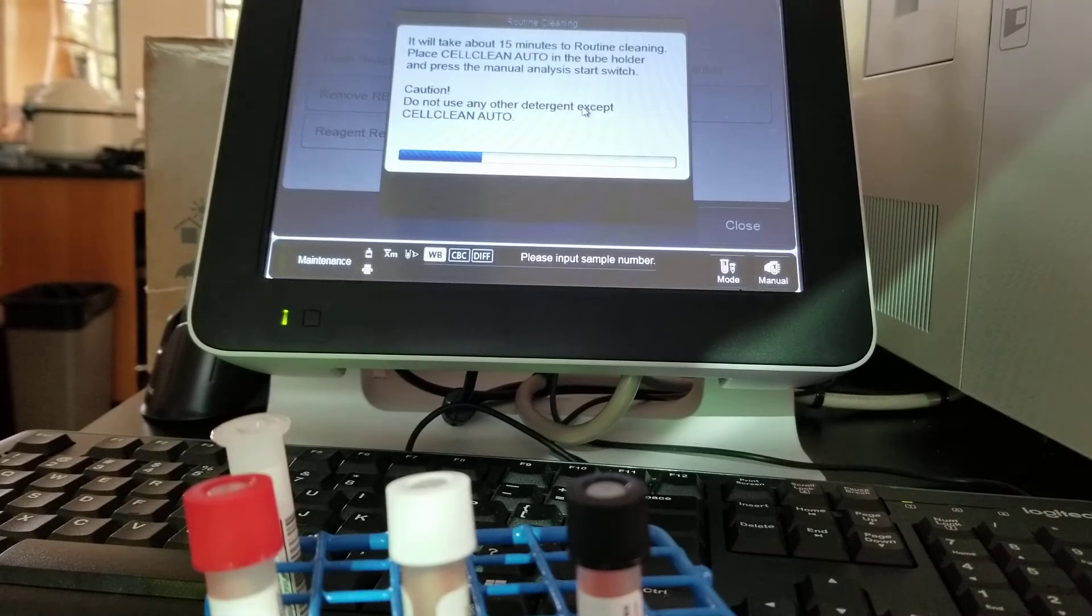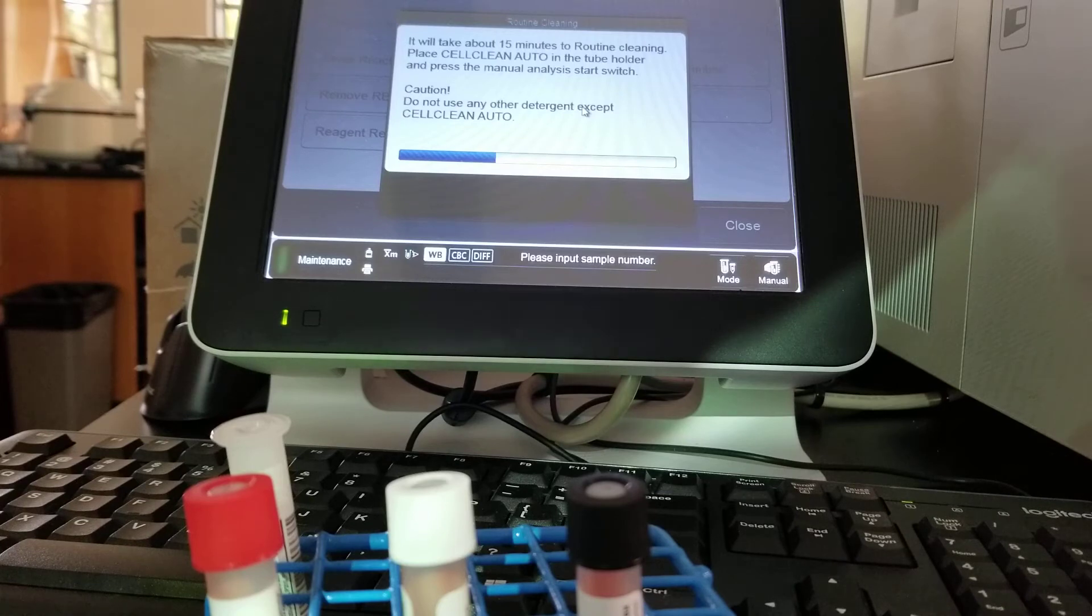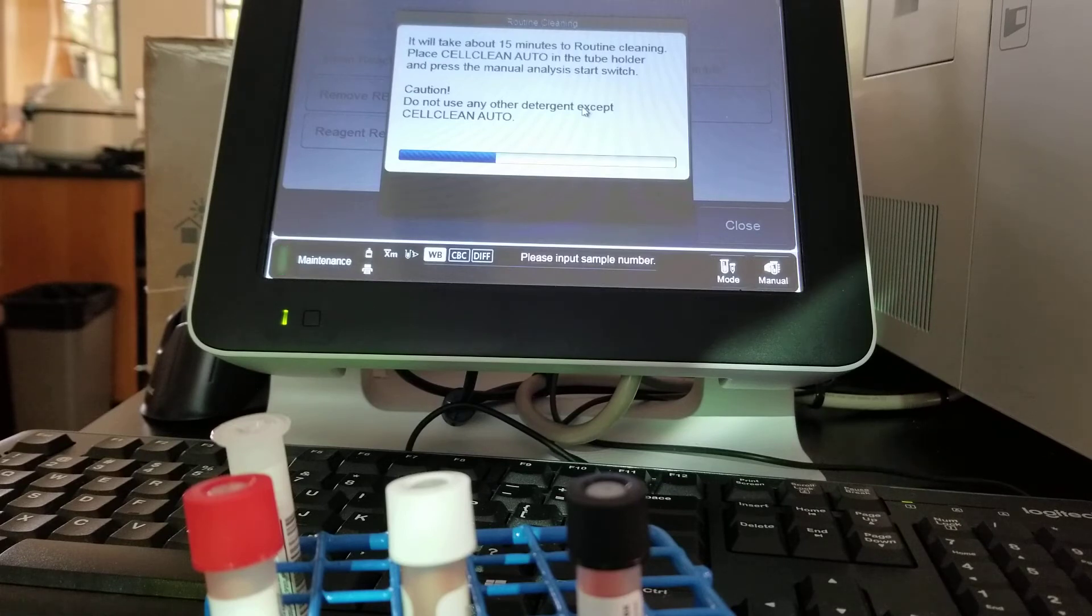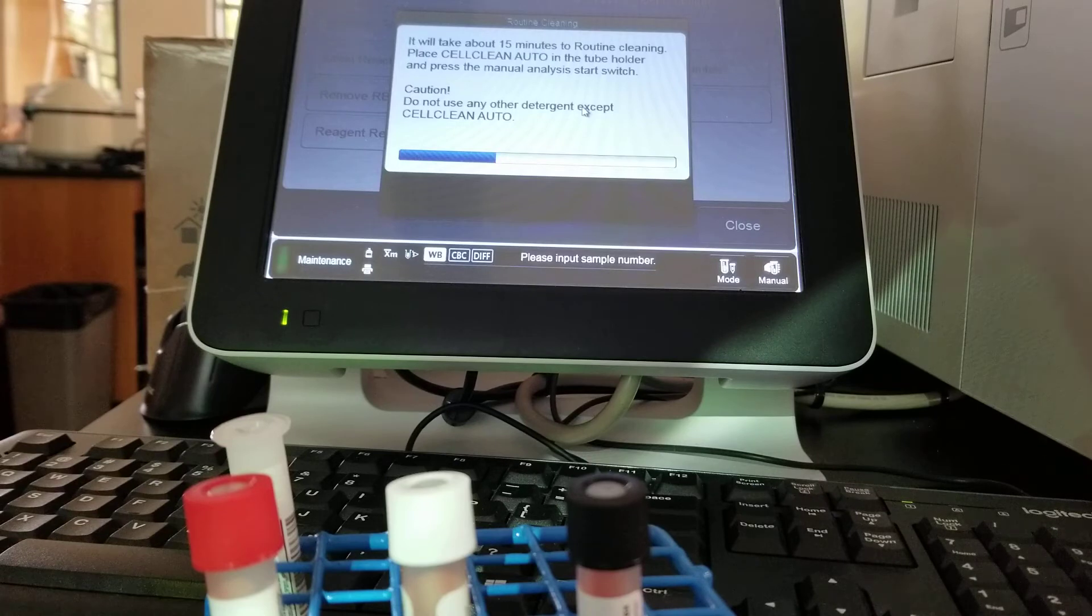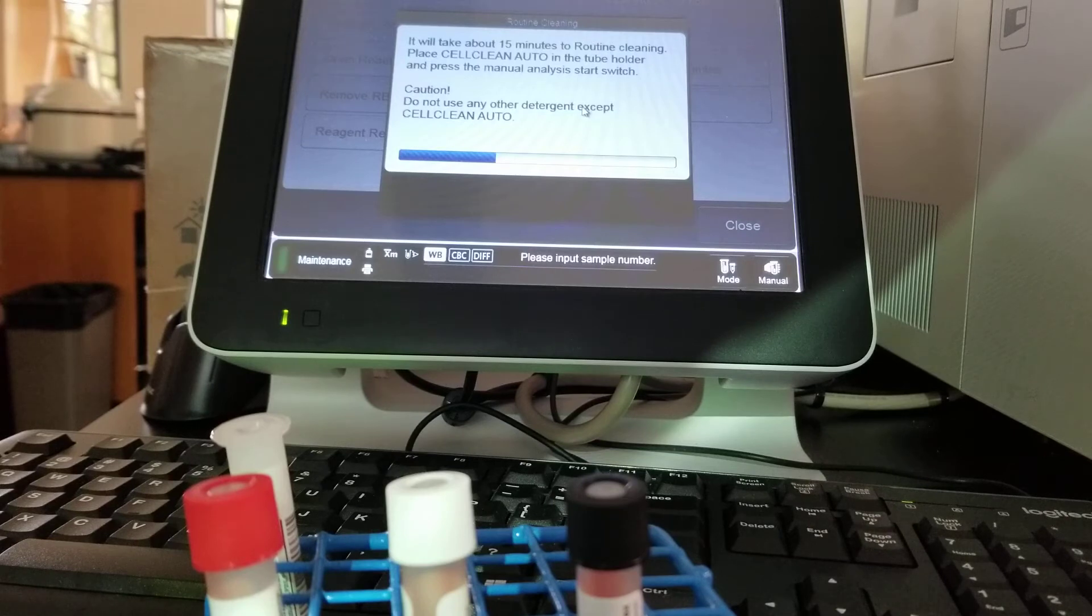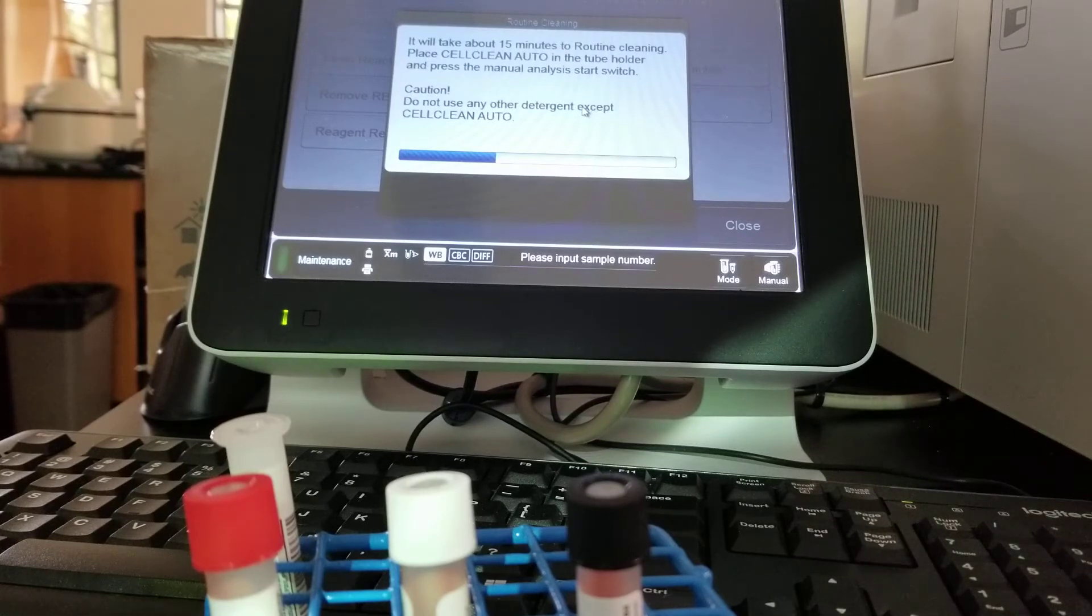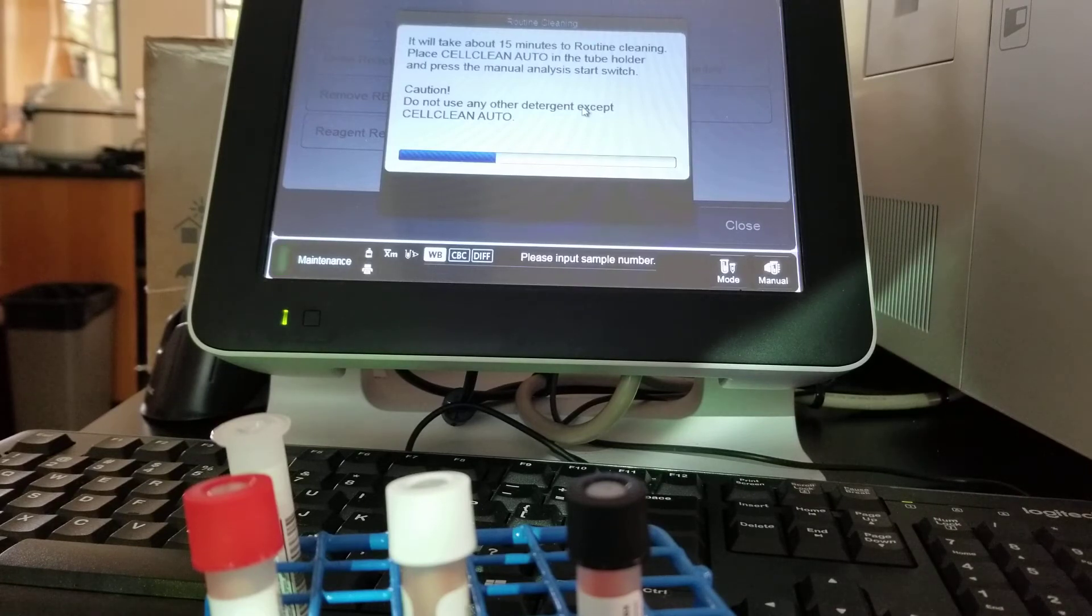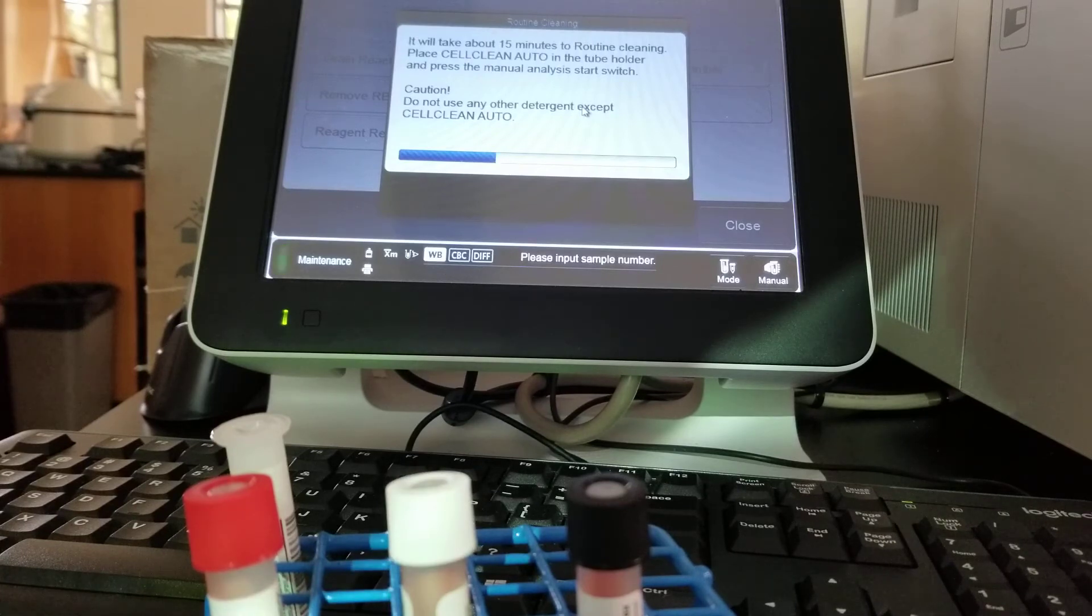I want to clear up one thing. I know that I said that our cell clean auto is a daily maintenance. It's just for us in our classroom lab. Daily maintenance includes the shutdown process, any reagent replacement that needs to happen. If you were using this in a hospital laboratory or a physician's office, you would make sure that you did those as your daily maintenance, those procedures, whereas the cell clean auto is just weekly.